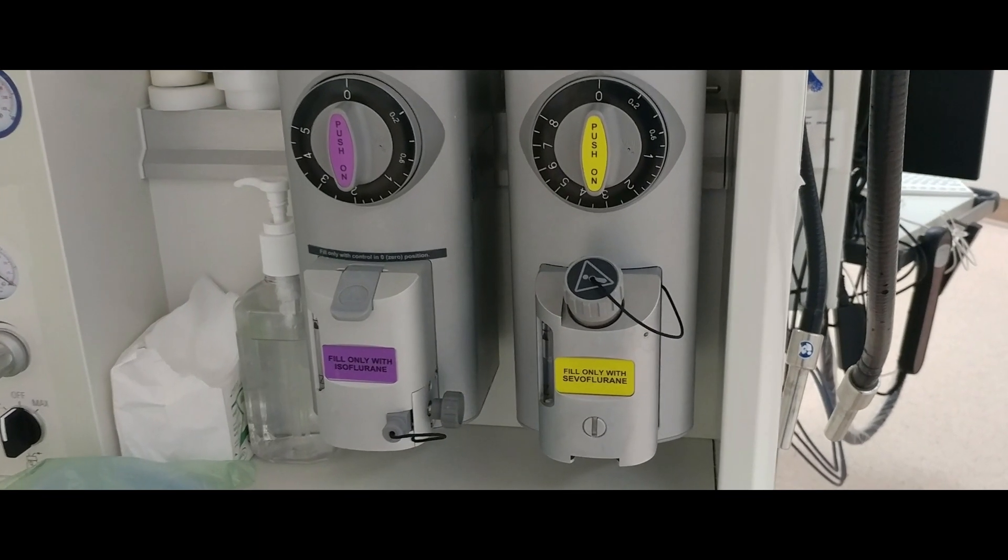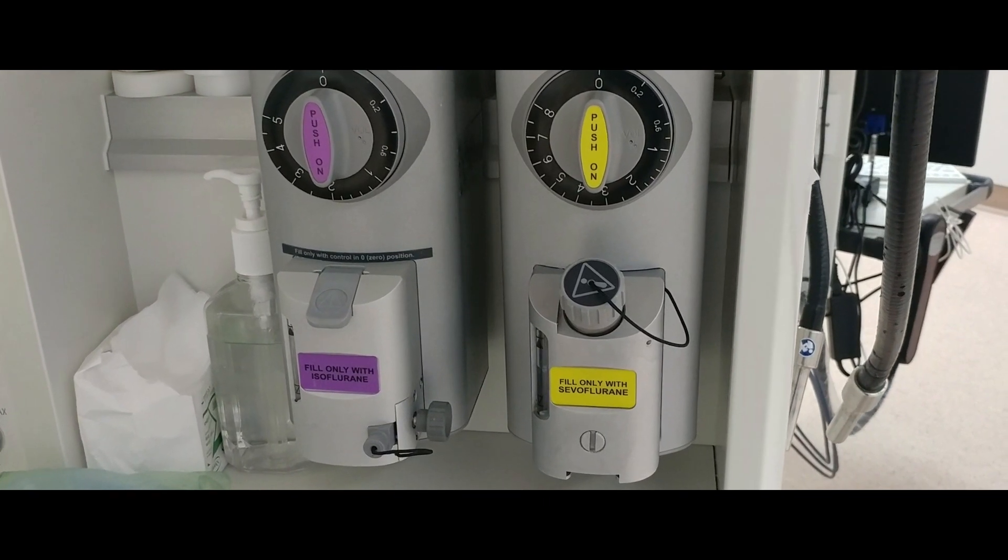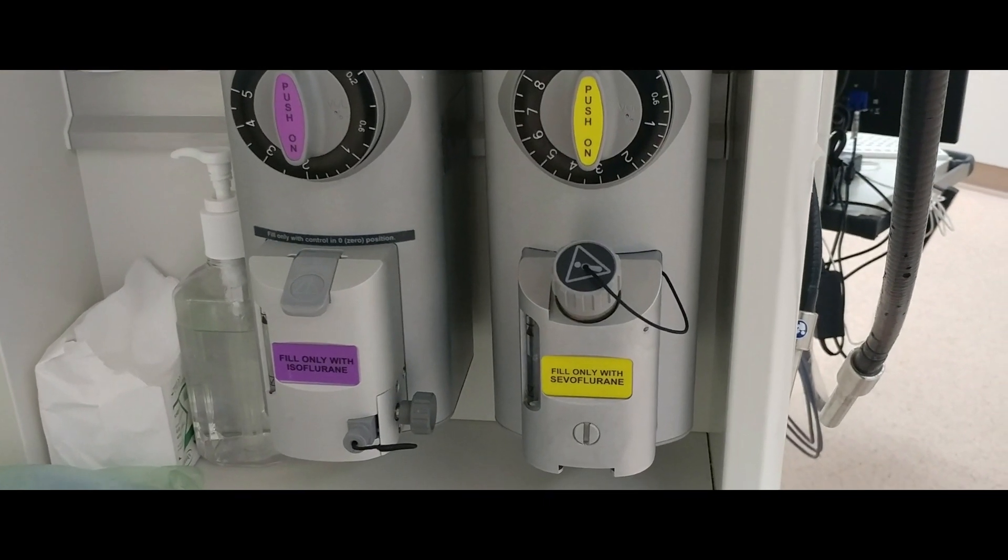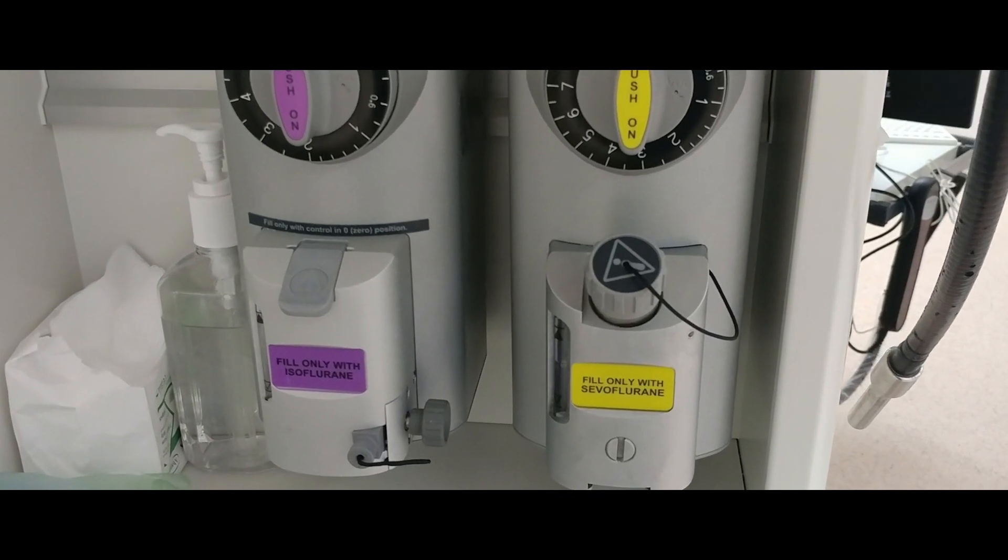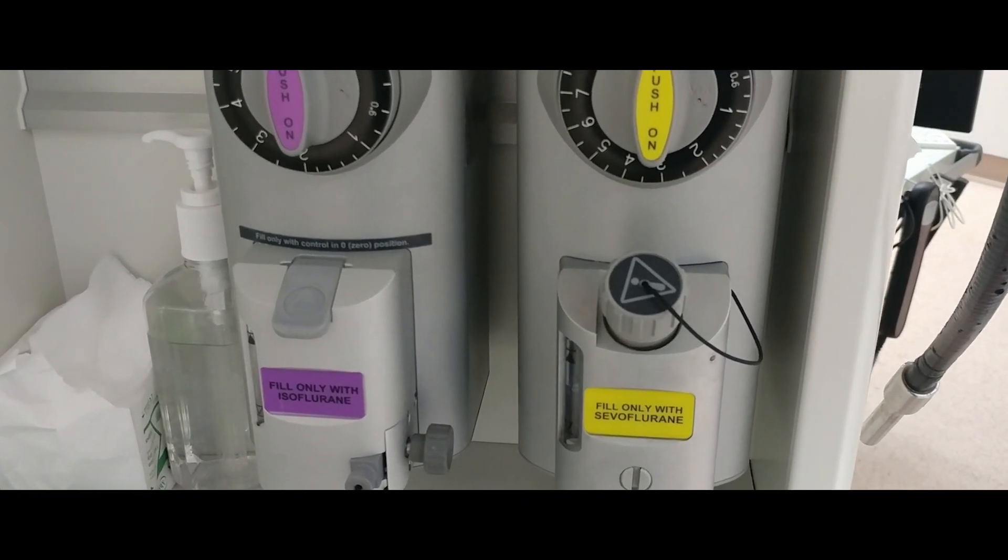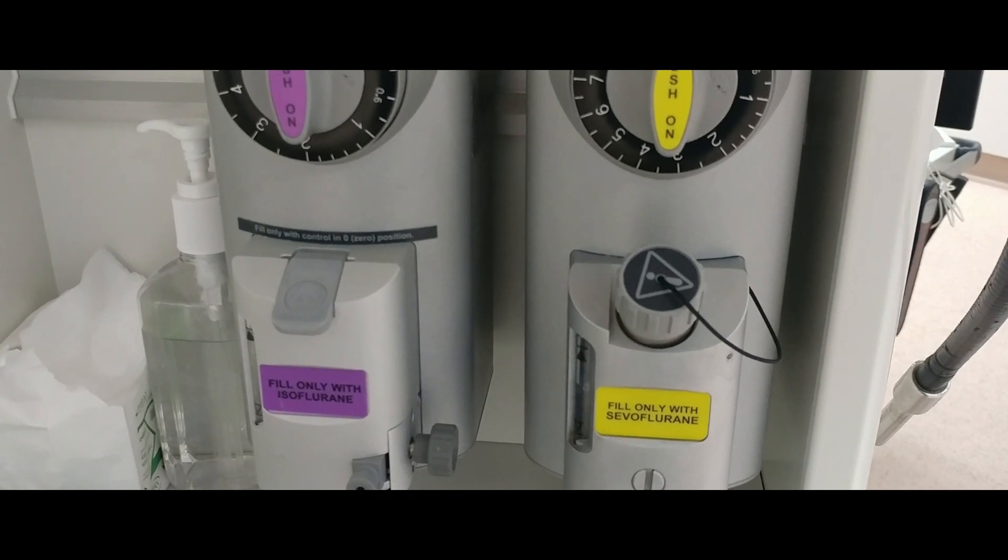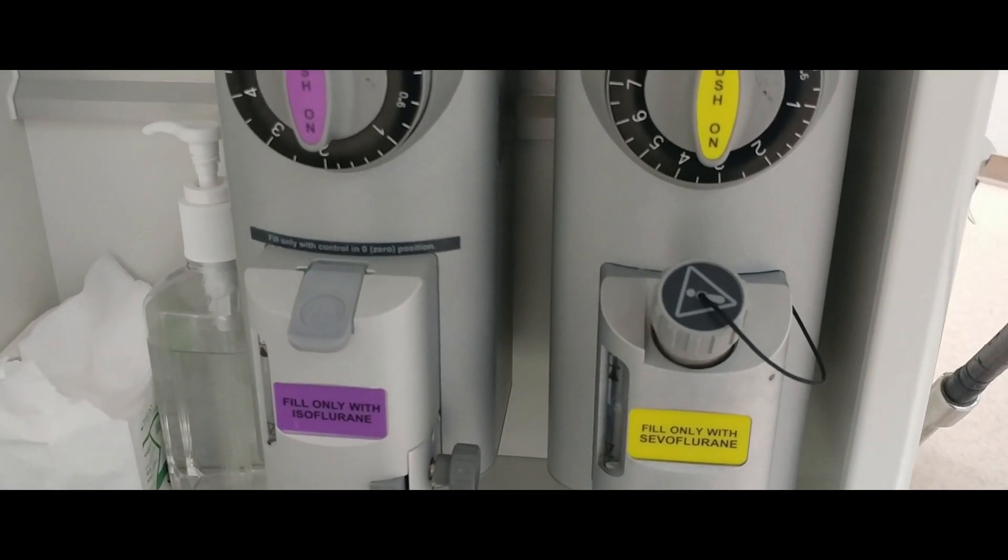It works by controlling the vaporization of anesthetic agents from liquid and then accurately controlling the concentration in which these are added to the fresh gas flow. The design of these devices takes account of varying ambient temperature, fresh gas flow, and agent vapor pressure.